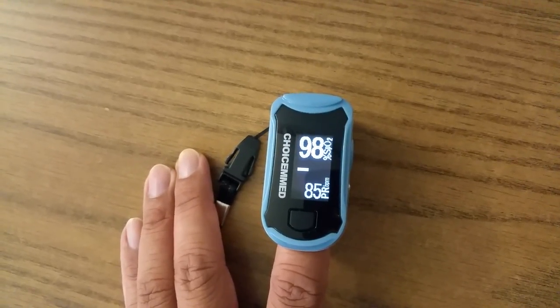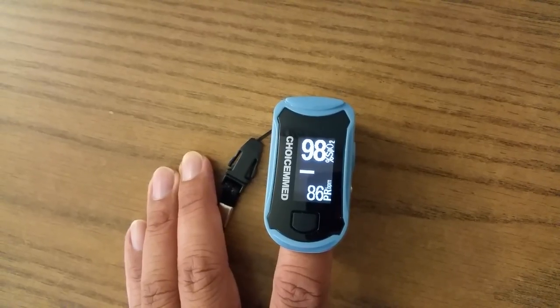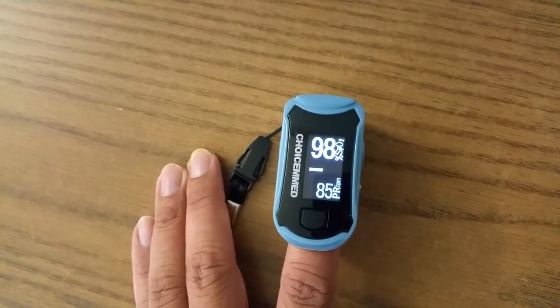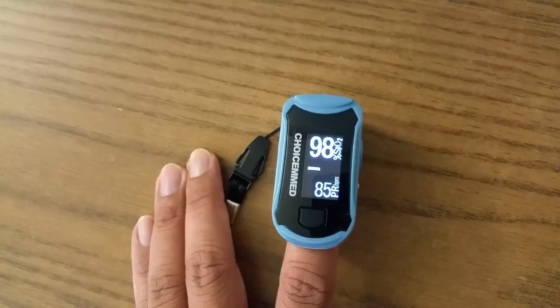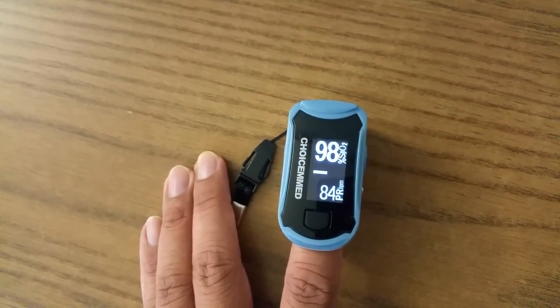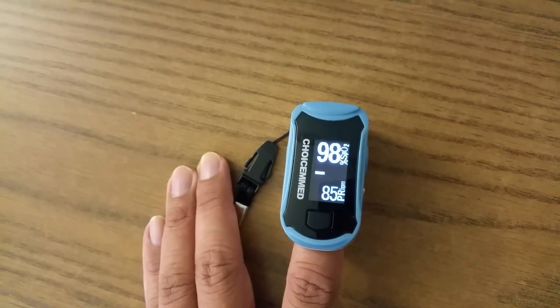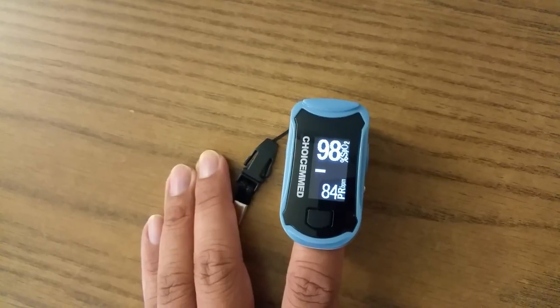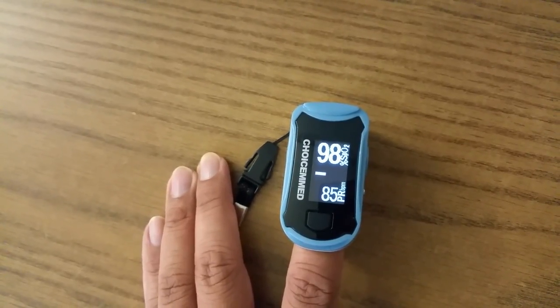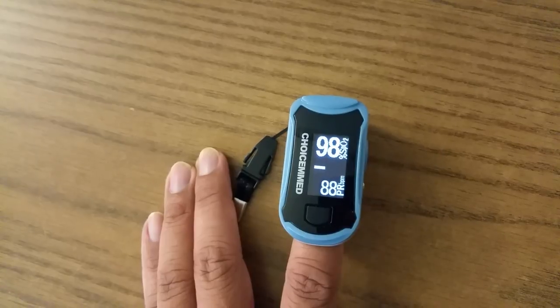For the top number — the oxygen number — we want it to be over 90 all the time. If it's ever going lower than 88, that's the number of concern.